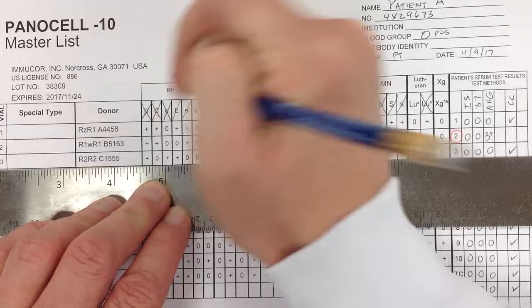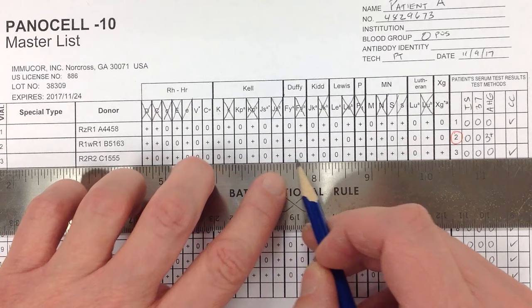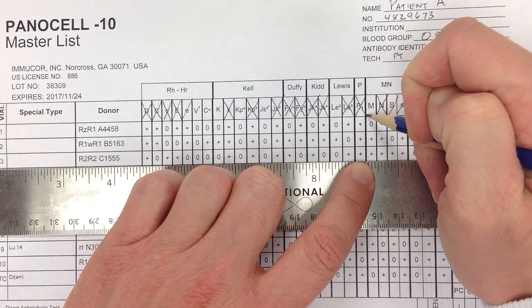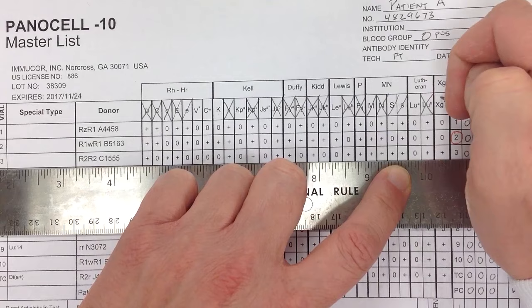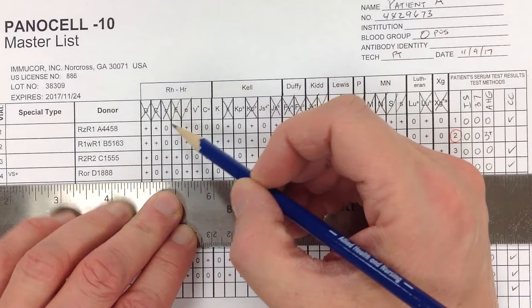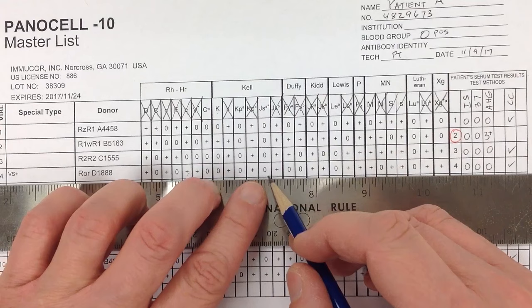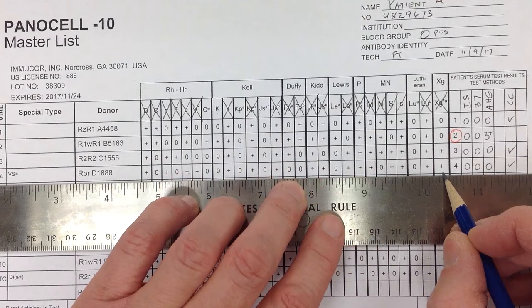Continuing with the remaining negative cells: little c is homozygous — big C not present, so completely cross off little c. Big E is homozygous — give it an X and cross it off. Duffy A is homozygous — cross it off. Kidd A is homozygous. Big M is heterozygous — single slash. XGA by itself — double cross it off. Little E is homozygous — completely cross that off. V is homozygous — give it an X. Big M is homozygous — completely cross that off.